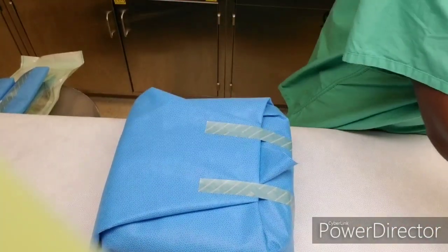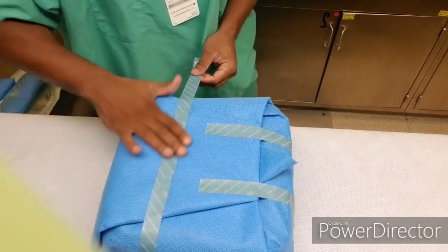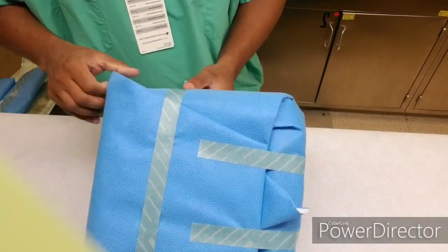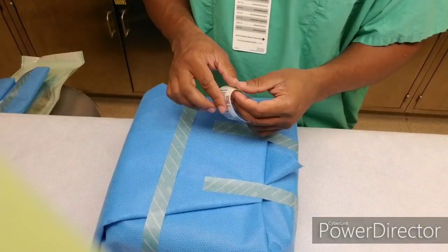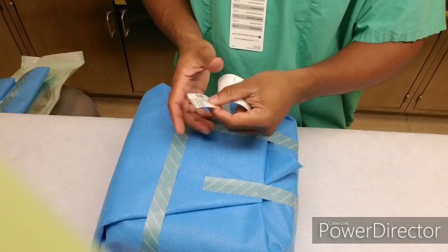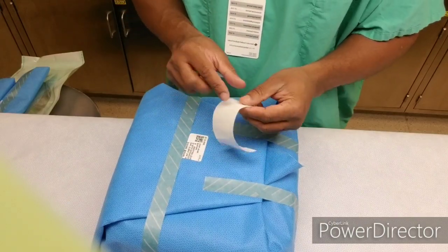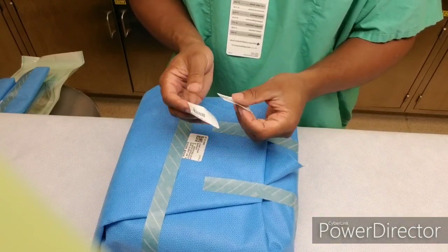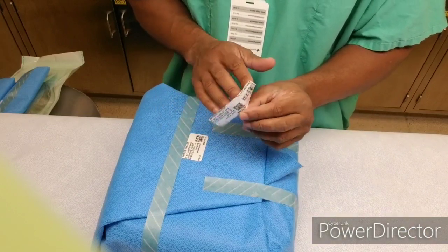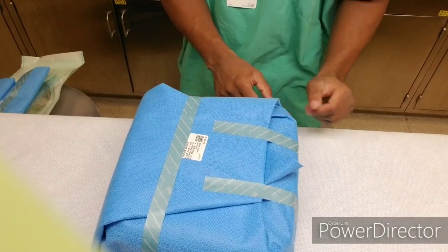They also love a lot of tape. The tape is basically to hold it down, and there's the flap — that's the flap that the surgical techs upstairs will pull to open the tray. Everything has to be done in a sterile way for them to open the tray. They can't touch it. So these are the labels I'm putting on.